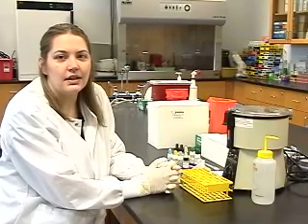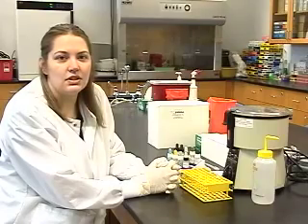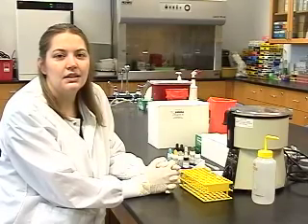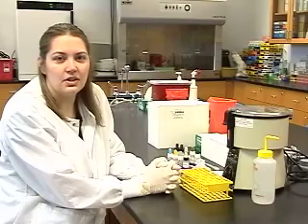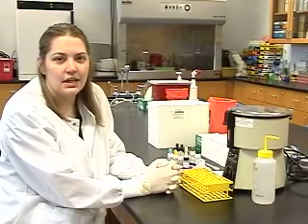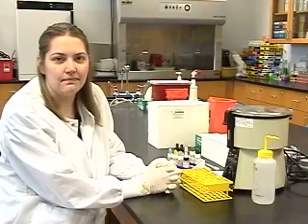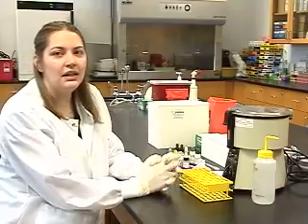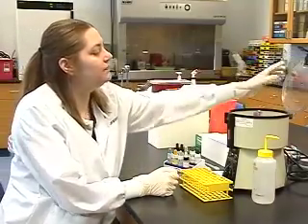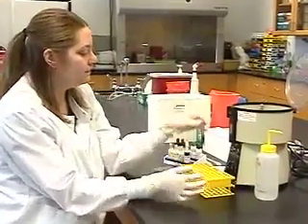The second part, the RH typing, looks for the presence or absence of RH antigens on the patient's red blood cells. This will determine whether the patient is RH negative or RH positive. The third part, the reverse type, looks for the corresponding antibodies present in the patient's plasma. We begin by spinning our patient sample in order to separate the red cells from the plasma.